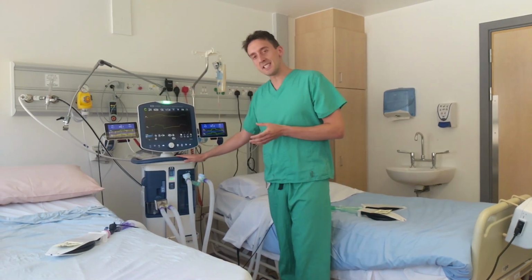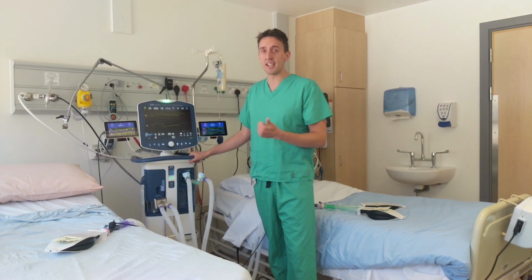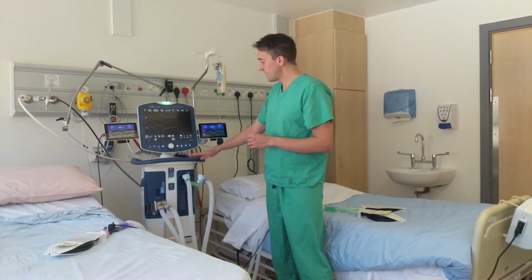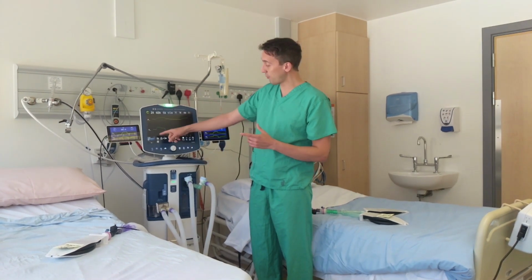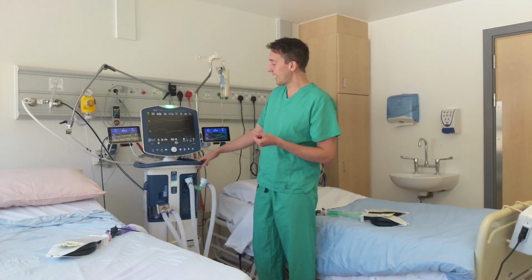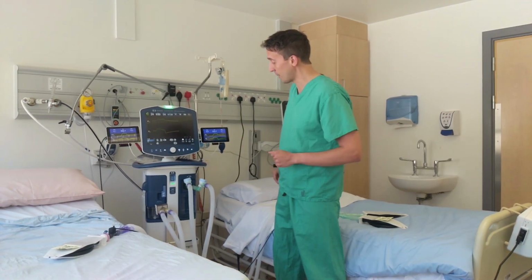So the system as you see it today is driven by an intensive care ventilator. We have tested it on other systems, other ventilators, and found the system to perform equally as well. But for demonstration purposes, I'll direct it to this. This is an intensive care ventilator set up in the following way. Respiratory rate of 14 breaths per minute, inspiratory pressure of 13 centimeters of water, a PEEP of 10, and an FiO2 of 50%. In this configuration, it's connected to 2 patients in the following way.